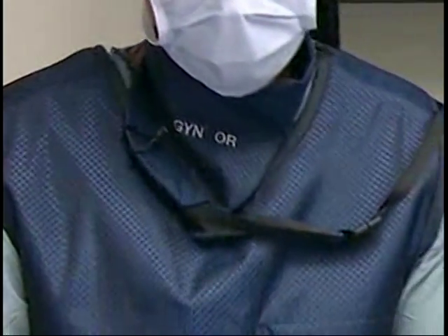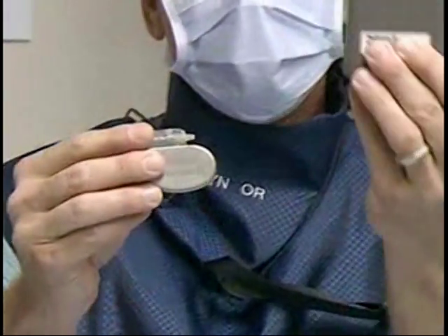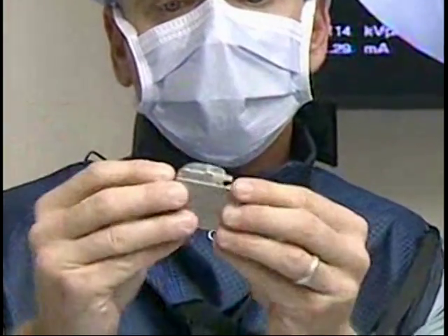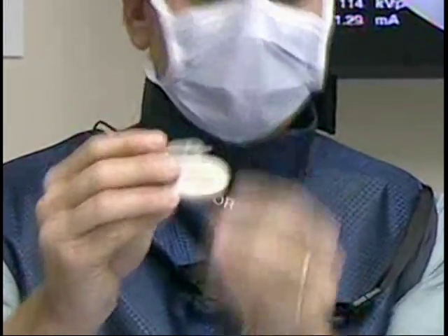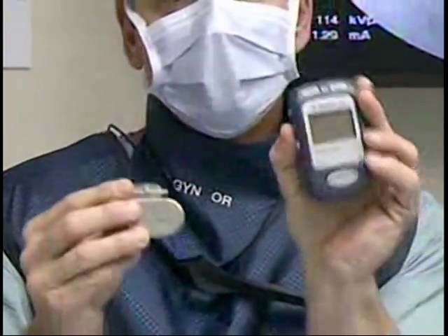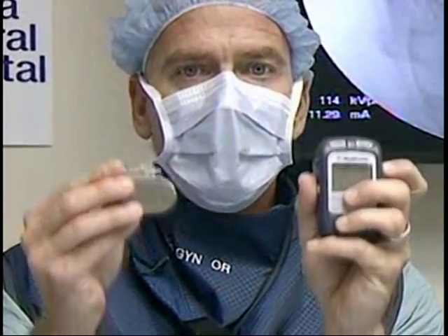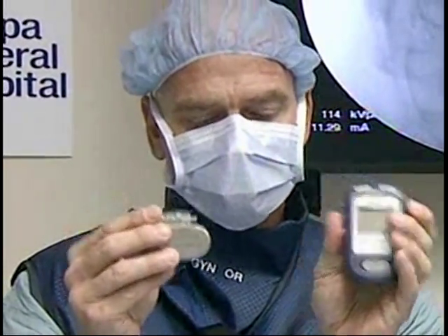When they put the permanent implant in, there's a small internal device — very small — with the ability to last anywhere from five to ten years as far as battery life. There's actually a programmer you use sort of like a remote on your TV. You don't have to connect to it; it sends a signal to the device and allows you to adjust it and get the best results.